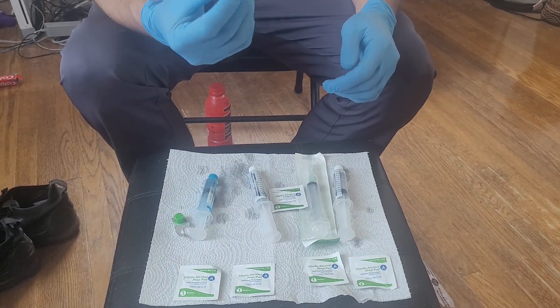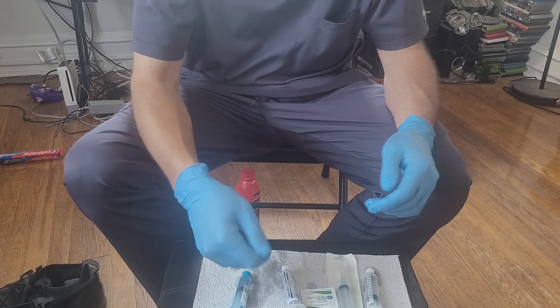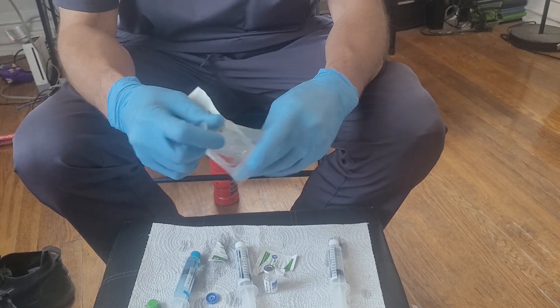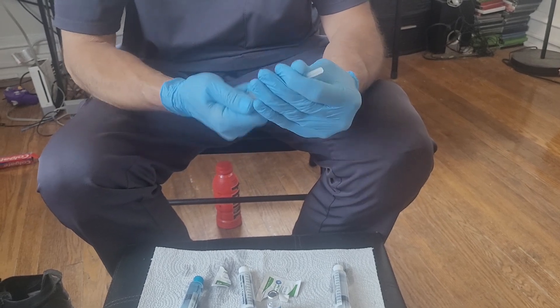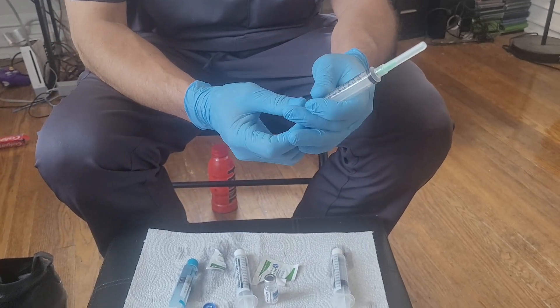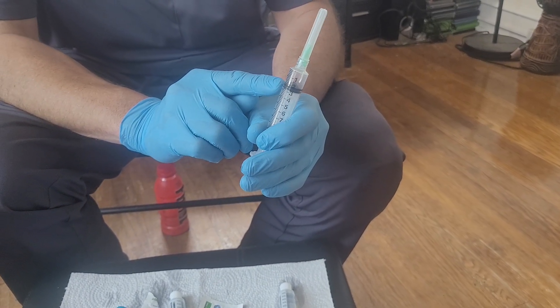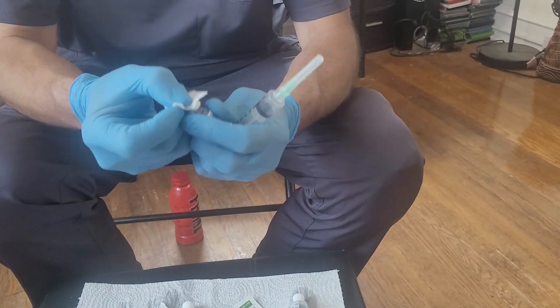This particular medication is anti-nausea medication — it's Zofran. We're going to pop the top, and anytime you're piercing something with a needle you have to scrub it with alcohol. We get our 10 milliliter syringe and first make sure the needle head is on tight because they loosen up in transit. Anytime you're drawing up fluid out of a vial, you first have to inject an equal amount of air into the vial to create a vacuum — otherwise you'll be fighting to get the fluid out. So I load up my syringe with two milliliters of air, then scrub down where I'm going to pierce with the needle.